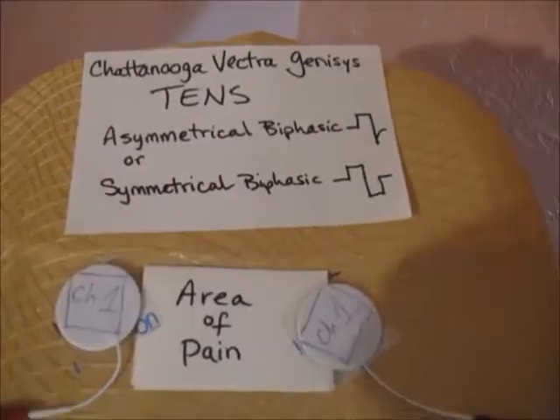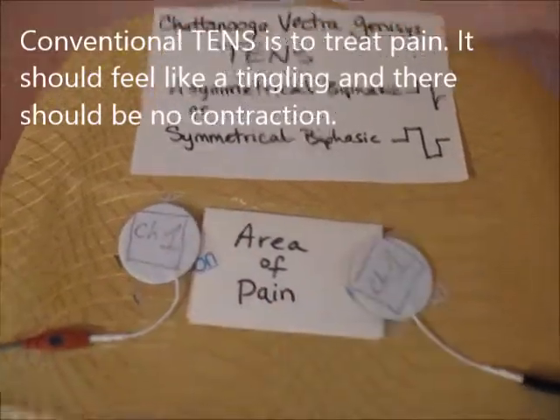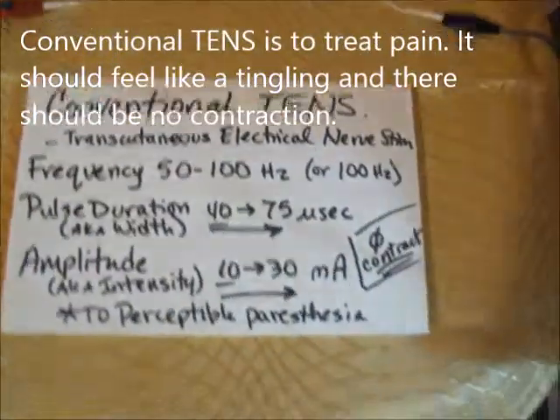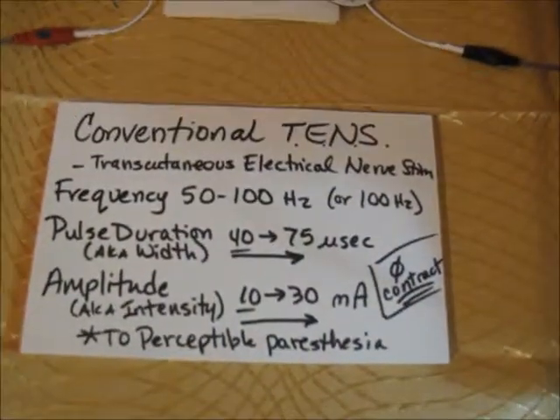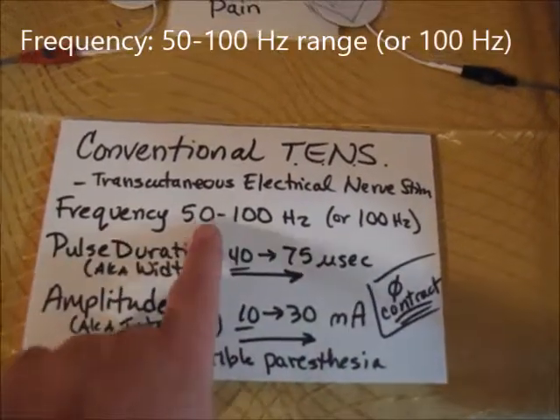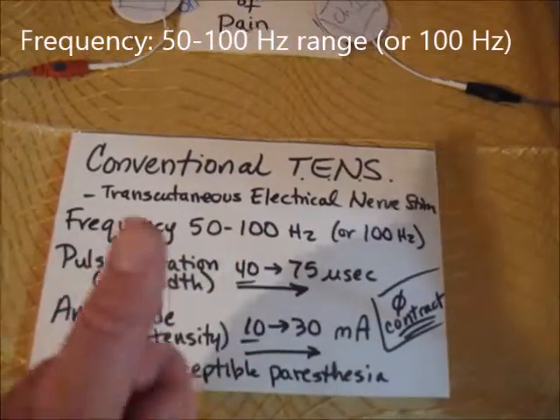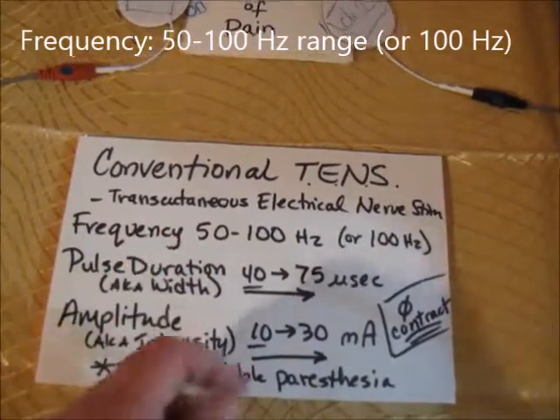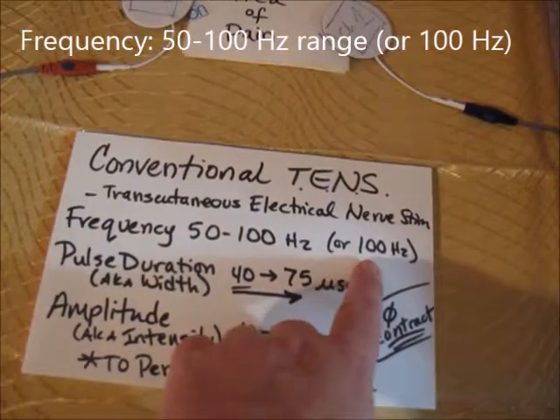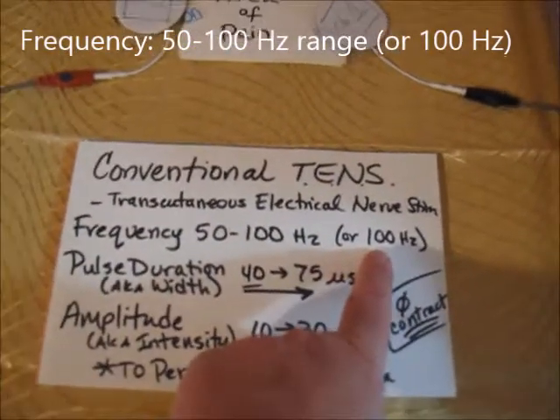The best thing about TENS is you get a tickle feeling — that is the whole idea. When we do conventional TENS we are going to use a frequency setting of somewhere between 50 and 100 Hz. Setting a range is better so the patient won't accommodate, but if you need to pick one number, choose 100.